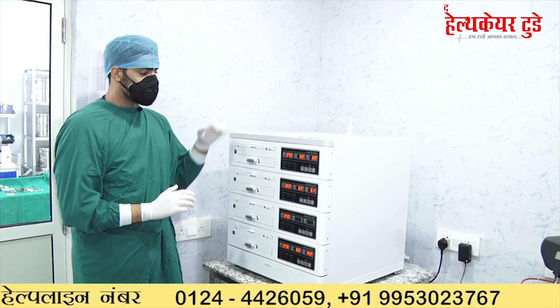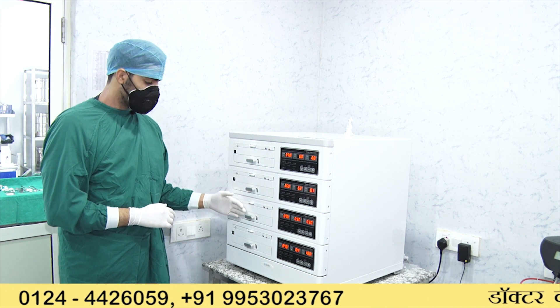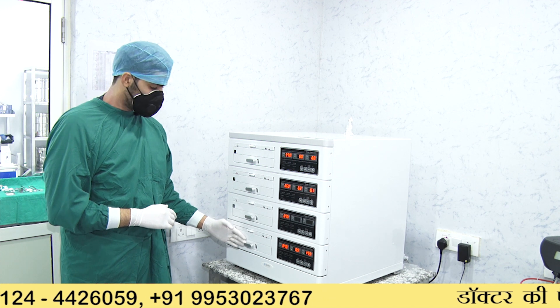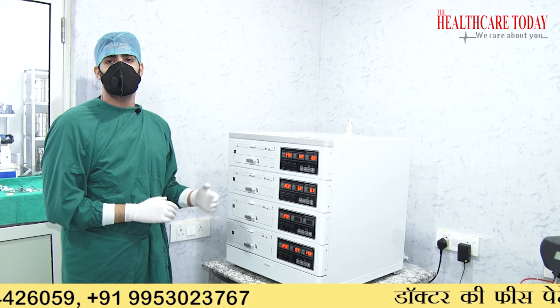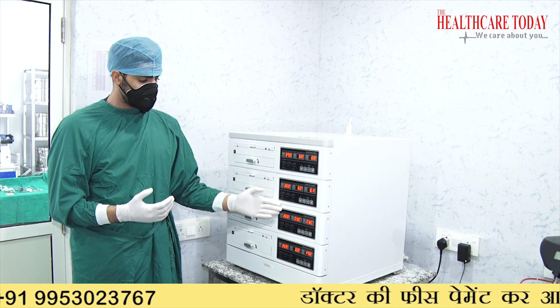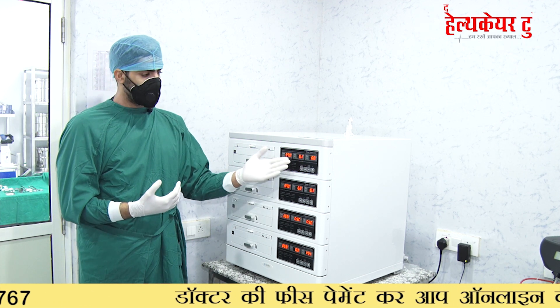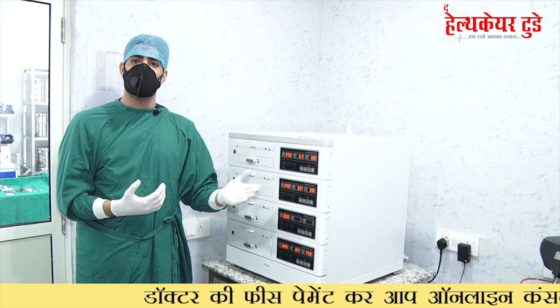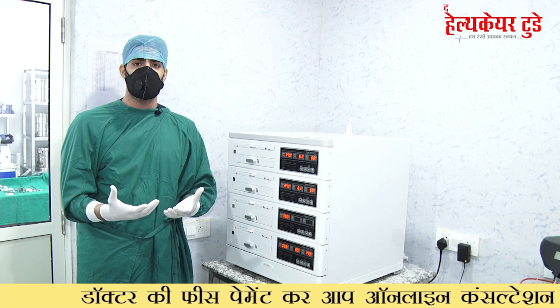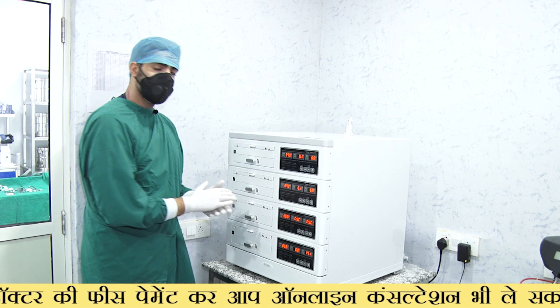This is our Aztec cube type incubator — we call it a cube because it has four different boxes and can act as four different incubators. This is the temperature gauge, which maintains the same temperature as present in the mother's womb. The gases CO2 and O2 provide the same environment as found inside the human body.